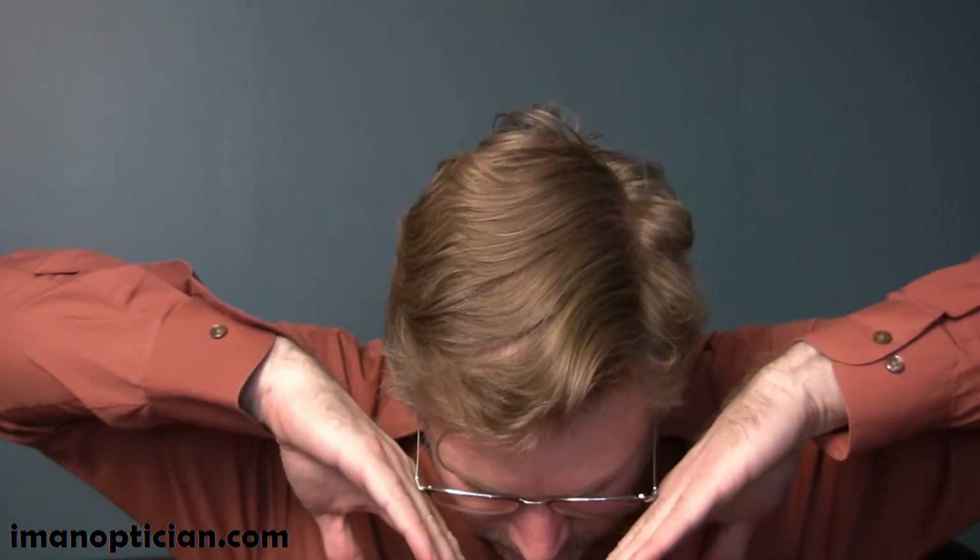A high face form, positive face form, would be something like a very wrapped sunglass, and negative face form as if it's coming out this way. We never have a situation where negative face form is desirable, but every frame should have some positive face form.